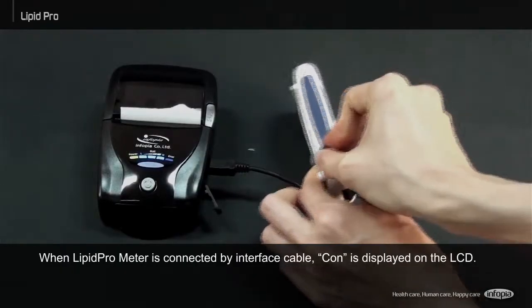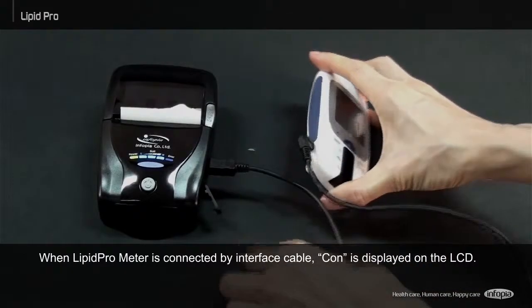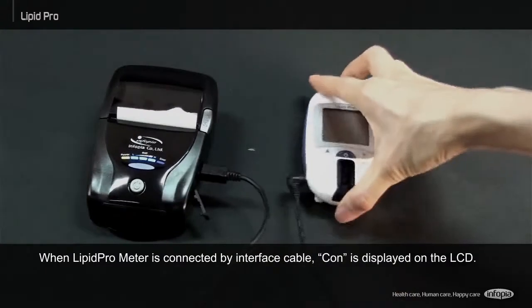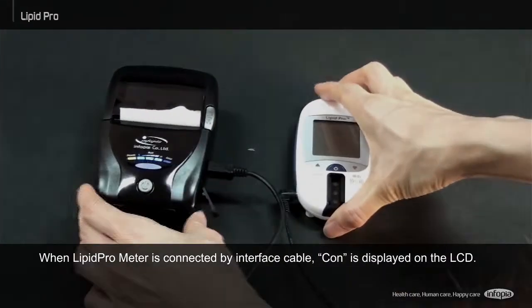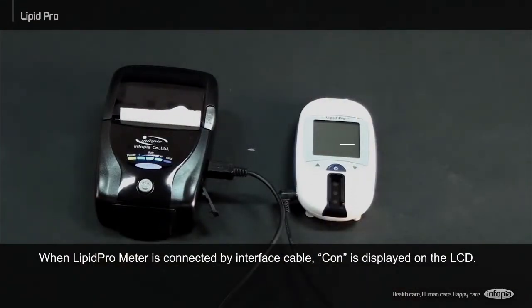When the Lipid Pro Meter is connected by interface cable, CON is displayed on the LCD.